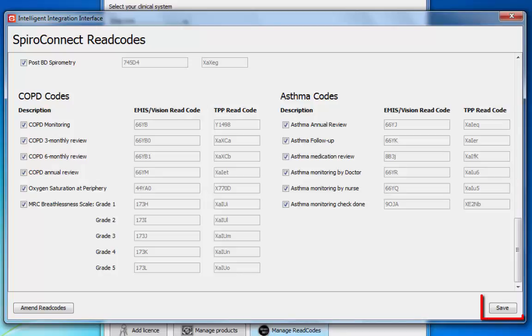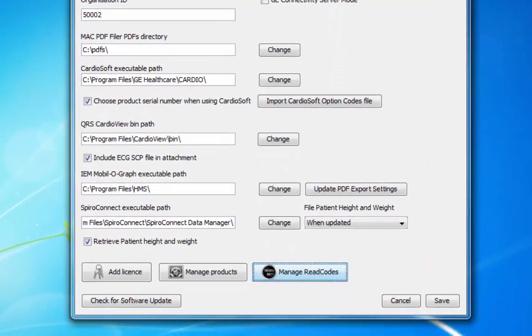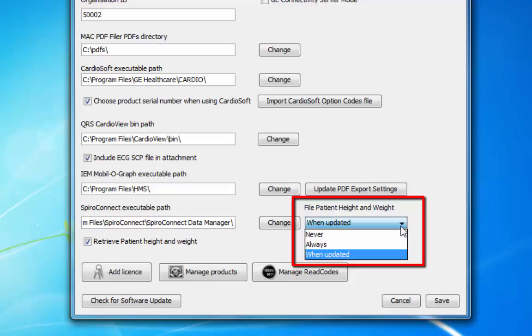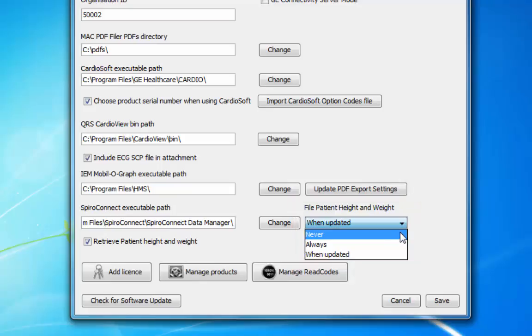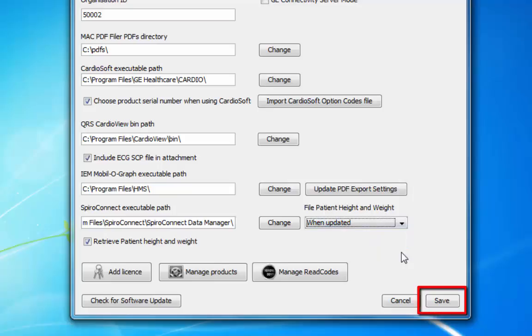Be sure to click the Save button before exiting the screen to save your changes. You can also choose the default setting for the filing of patient height and weight data. When 'Never' is selected, the height and weight values will never be selected for filing by default. Selecting 'Always' will select height and weight for filing regardless of whether they were updated. Selecting 'When updated' will only select the values if you updated them at the time of beginning the test. Whatever option you choose, this can be overridden at the time of filing. Be sure to save any changes.